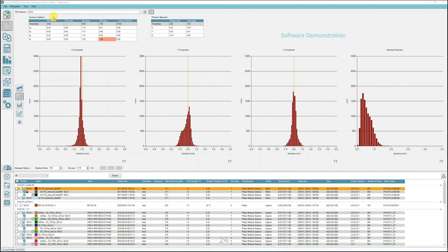The summary statistics chart in the upper left section of the screen reports significant statistics for single series reports. The phantom alignment chart, next to the summary statistics chart, reports geometric data derived through the use of heuristics and phantom design elements, including contrast of boundary fiducials at reference positions on the boundary of the phantom, and a central cuboid structure with three mutually perpendicular coordinate alignment axes, to precisely measure the phantom isocenter position relative to DICOM isocenter and phantom twist about all three axes. This permits reporting patient table roll, pitch, and yaw, and any laser offsets to sub-millimeter resolution.